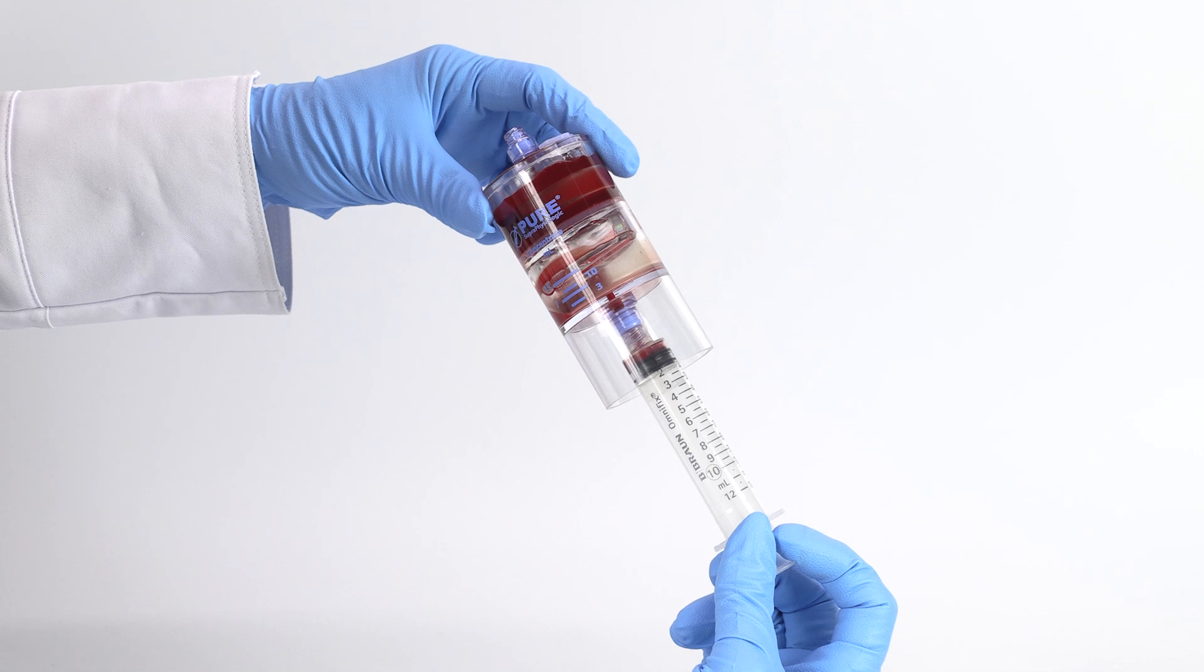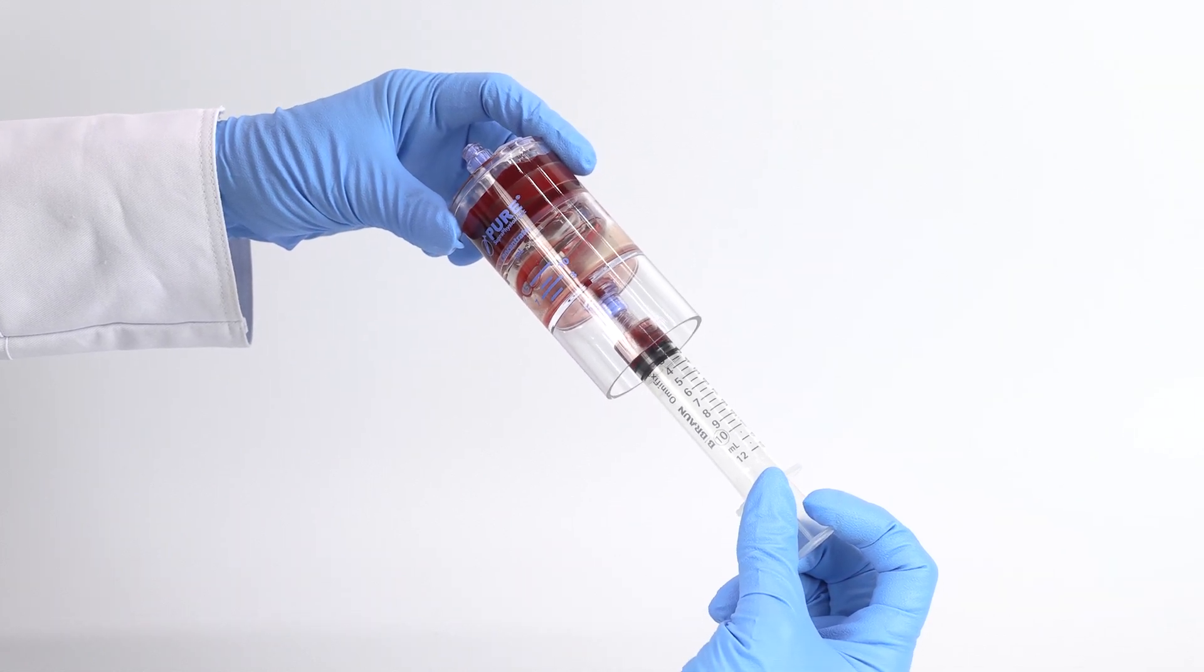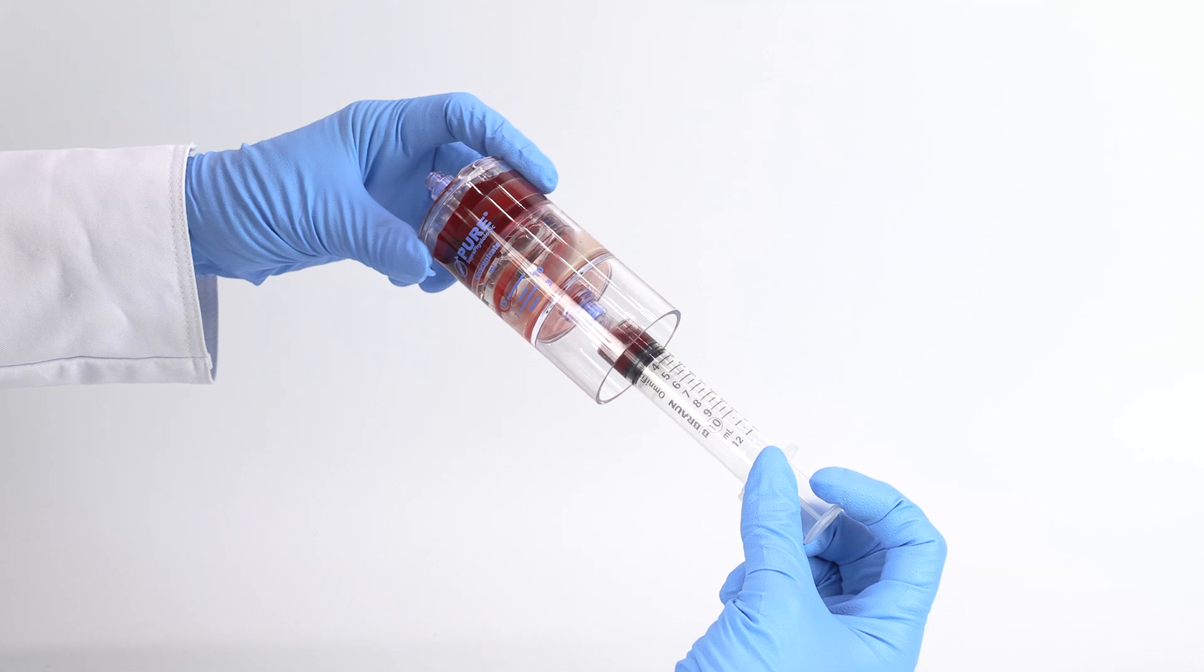Attach the 12-milliliter syringe to the needleless port and tilt the device to aspirate the bone marrow concentrate.